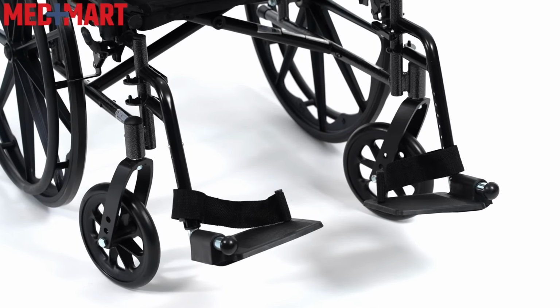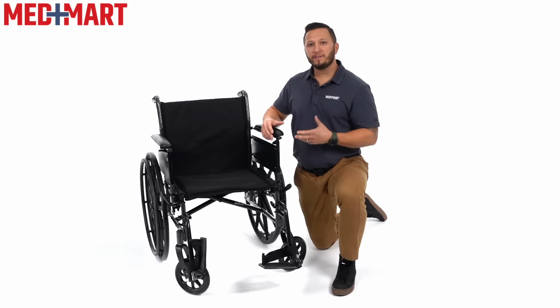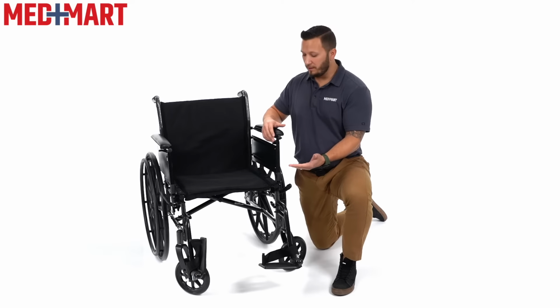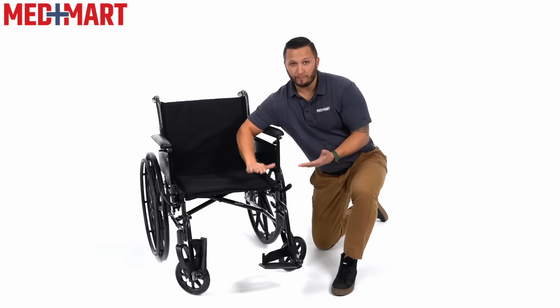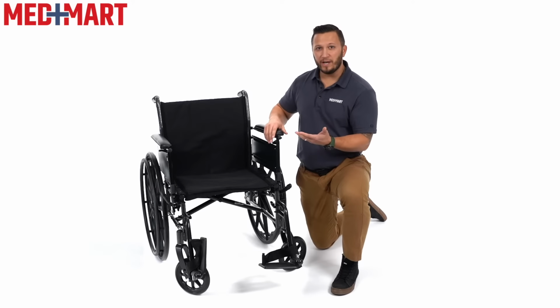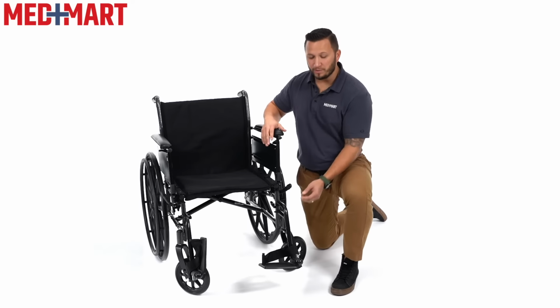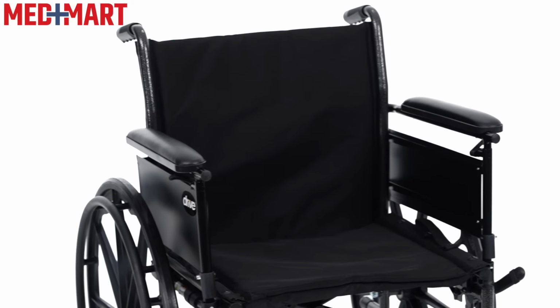Another modification that can be made to a standard manual wheelchair is the footrest height. Let's say that you have your footrest in the standard position that it comes in, but you're noticing that your knee is way off of the cushion. In order to change that to bring your thigh down to parallel to the ground, you would simply lower the footrest. The arm height can also be adjusted in some manual chairs.